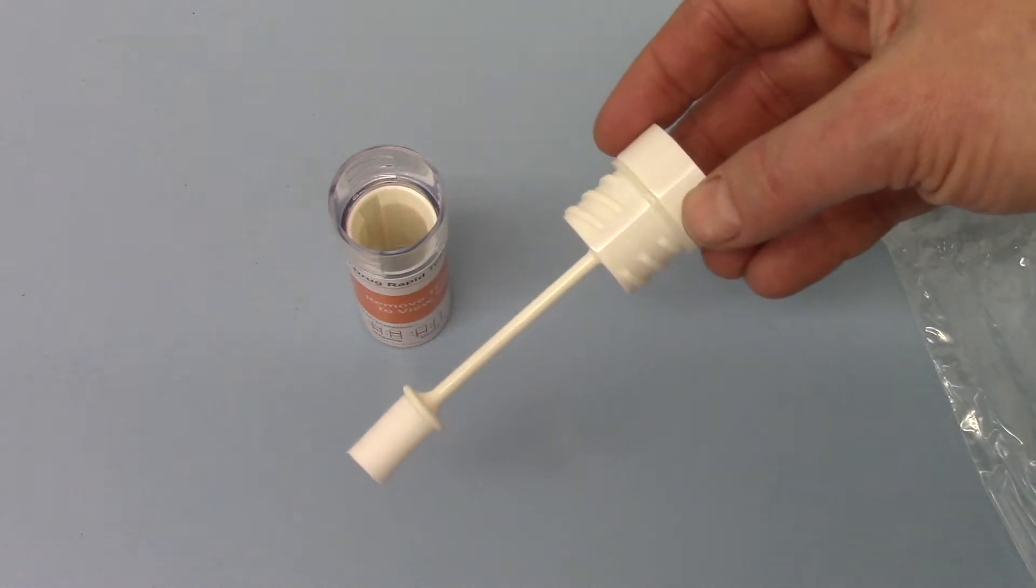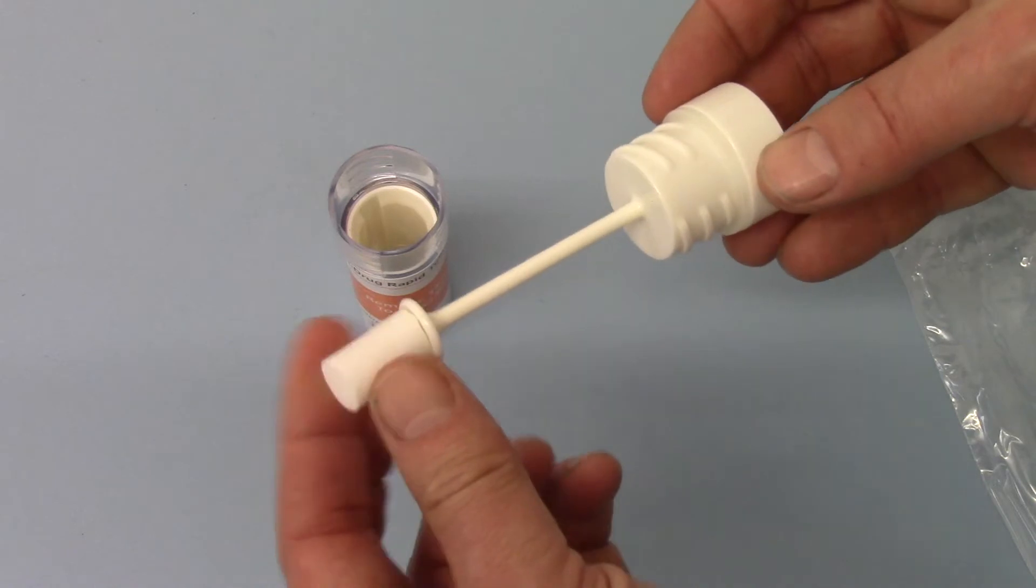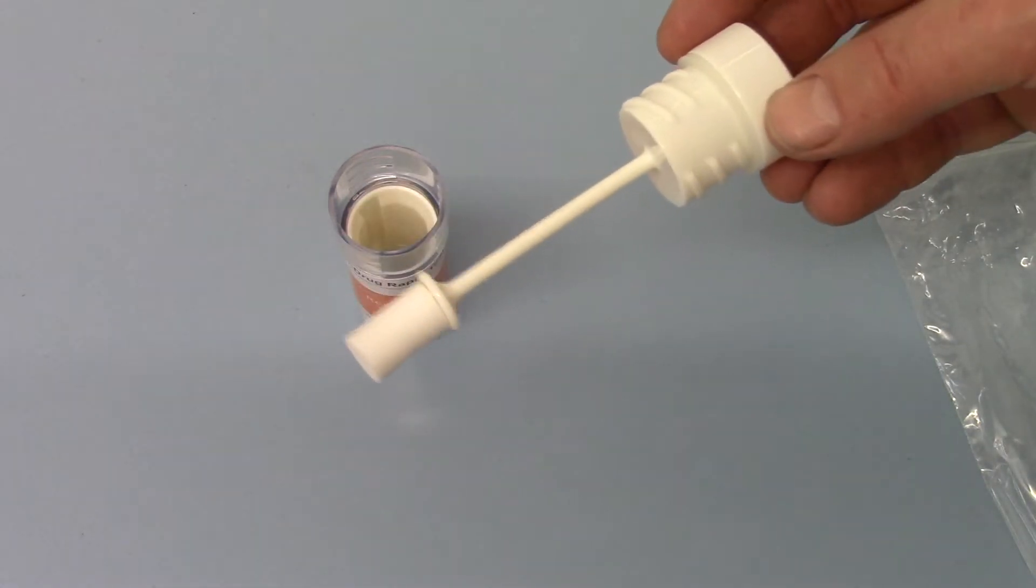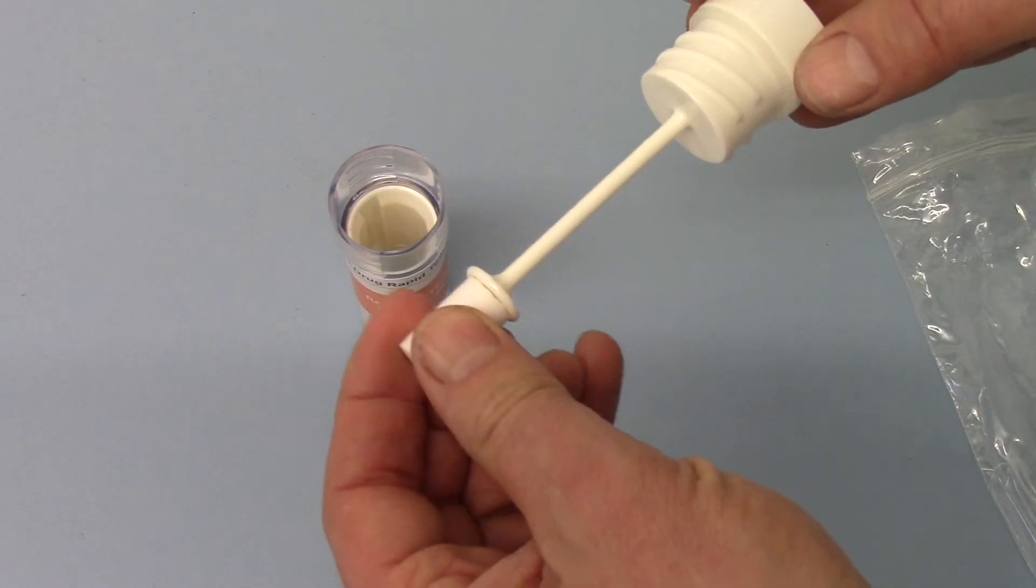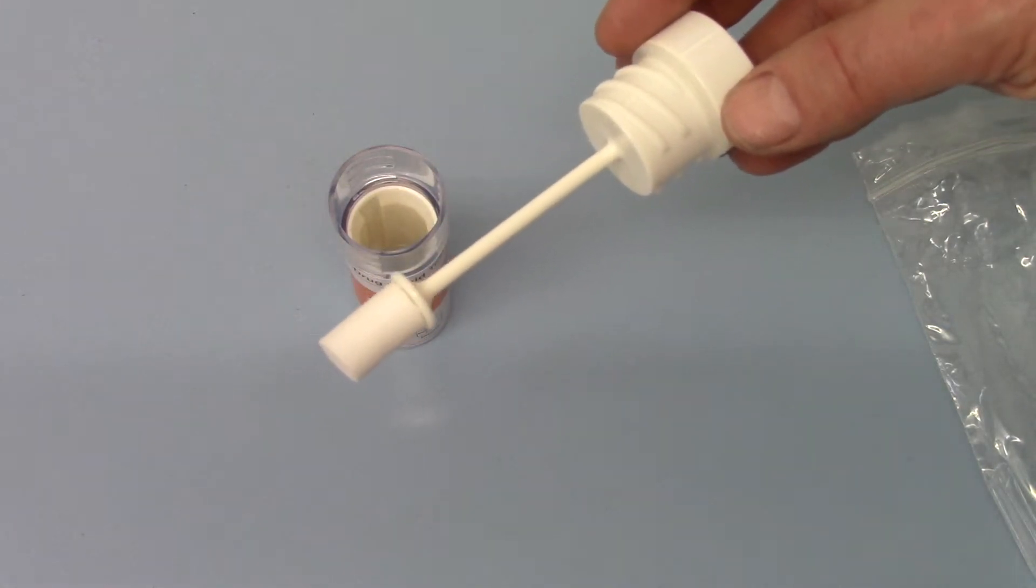This is the saliva collector or swab on a stick. When it comes to you, the swab is completely rigid and firm, can't be moved at all, it's solid. That has to be completely saturated in saliva.